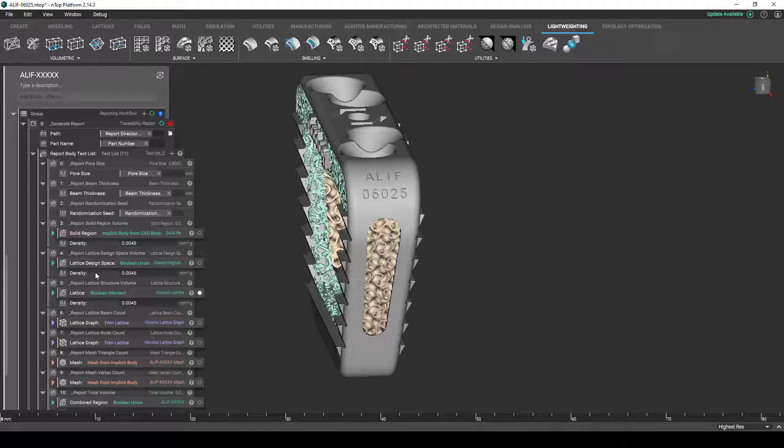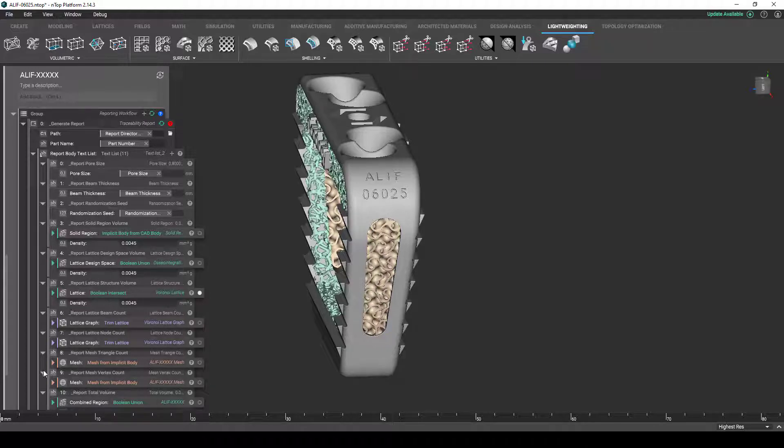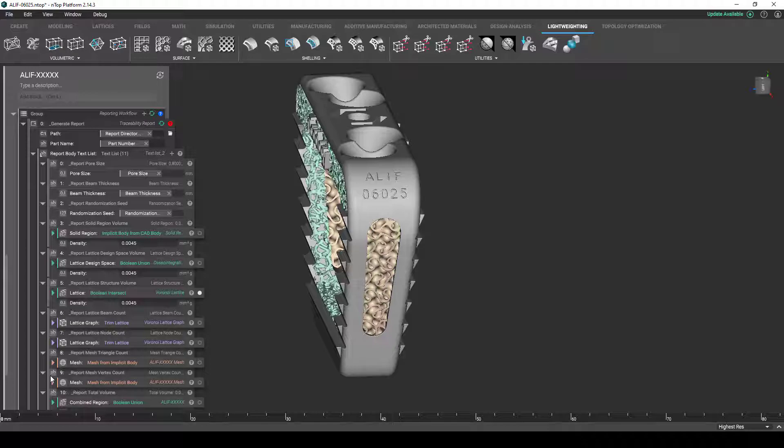If we generate a lattice, the distribution of nodes and beams will be unique. If we generate a mesh, the number of triangles and nodes will be unique as well. Because the part configuration defines a specific implant size, properties such as volume and mass, these are all going to be unique to that part configuration. As a result, this whole reporting workflow here actually keeps track of all this generated information and spits out a text file report that can be used as a QA reference and a valuable component for your internal traceability compliance process.